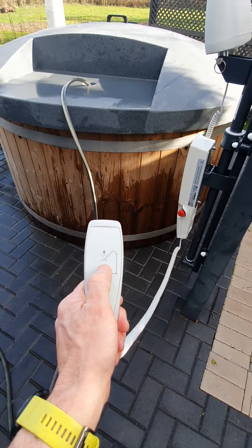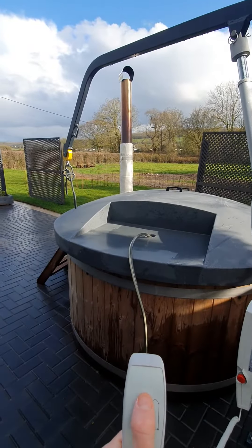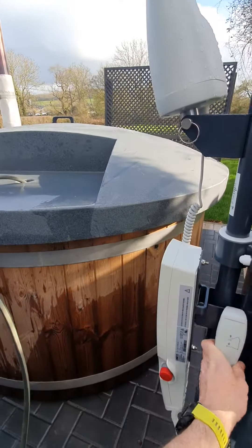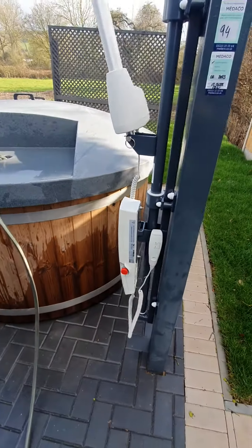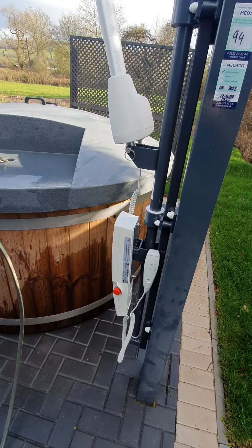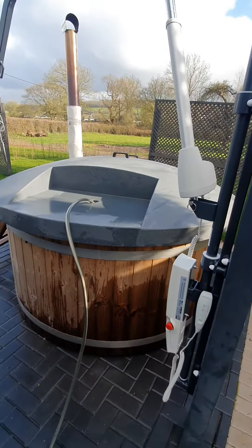Obviously I'm sure you're all familiar — you're able to raise and lower it as you require. We just ask that if you go out for any prolonged periods, you take the battery pack back inside and charge it, and the same on checkout: if you could just leave it on charge for the next guests, that would be fantastic. Thank you.